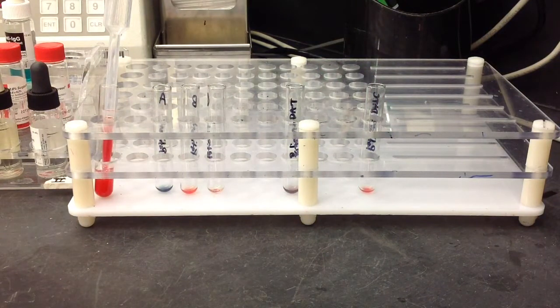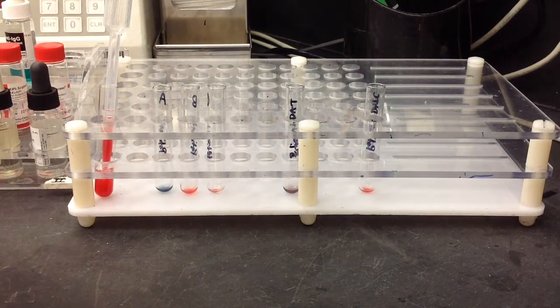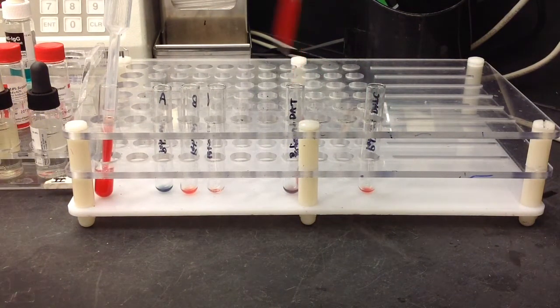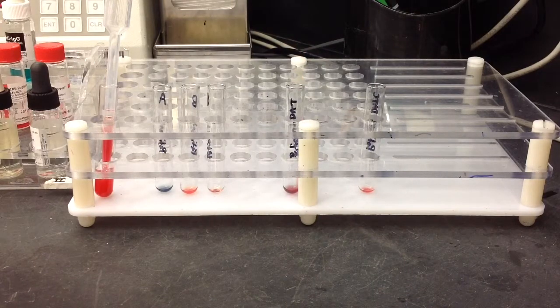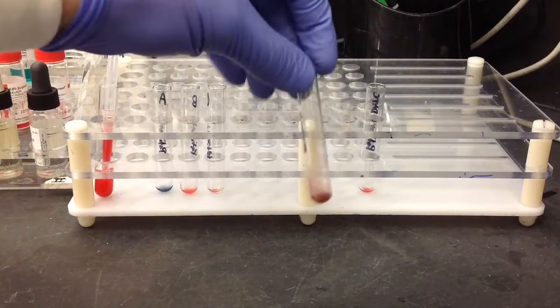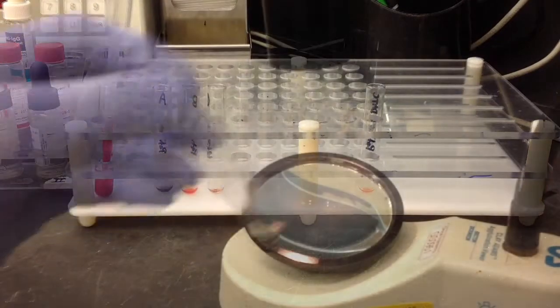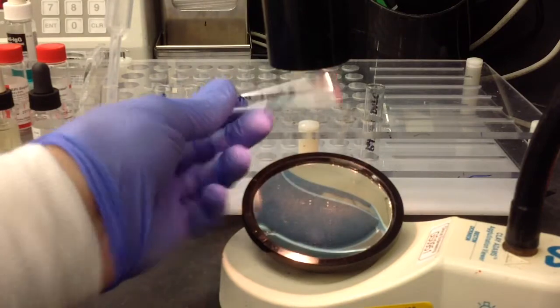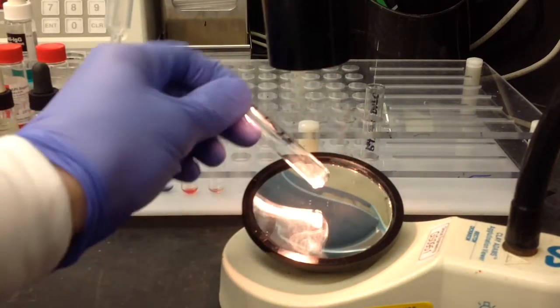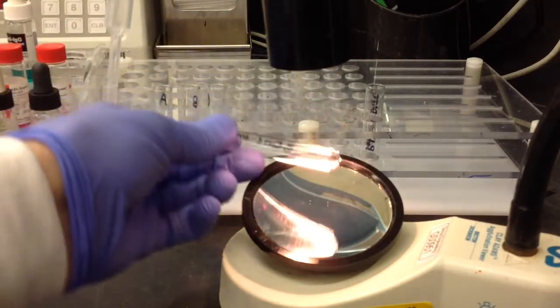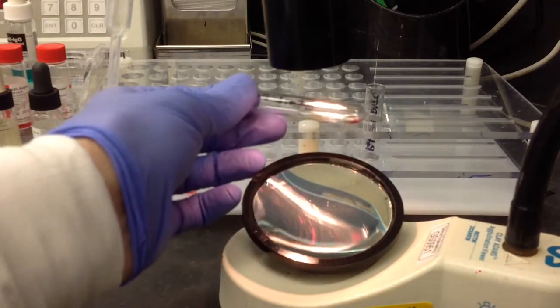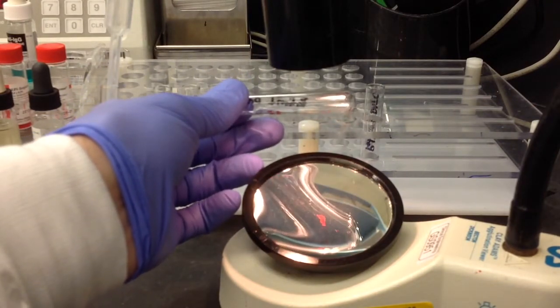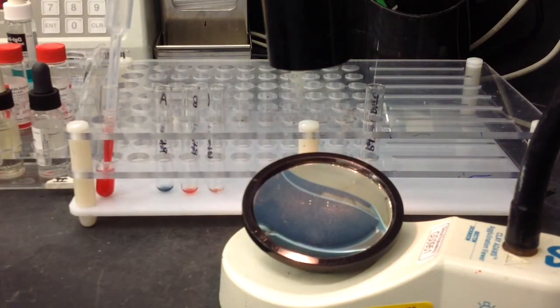After that, reading the AHG, you want to add some check cells. And this is just to make sure that we wash the specimen enough. So just centrifuge, and then go ahead and get your agglutination viewer out, and then just resuspend your cells. Now, you're looking for an agglutination here, and that just shows that everything went right with the process that we did here. And you can see there that I have agglutination.